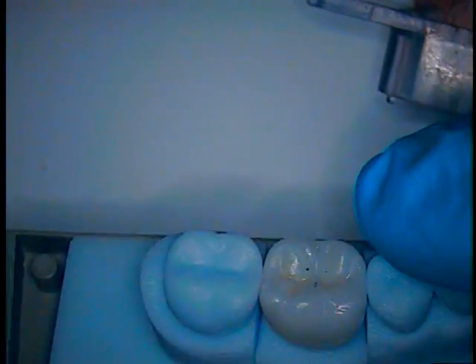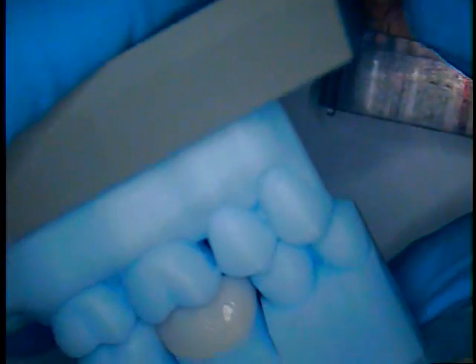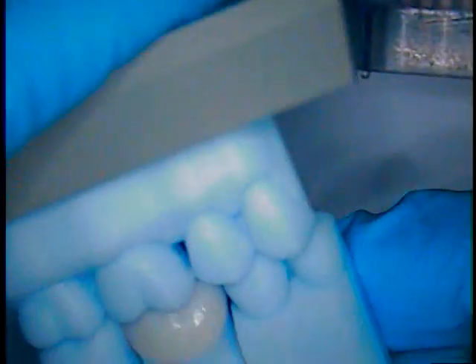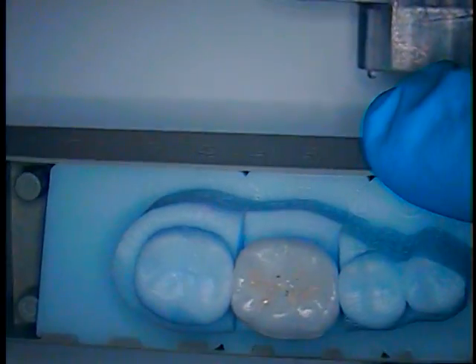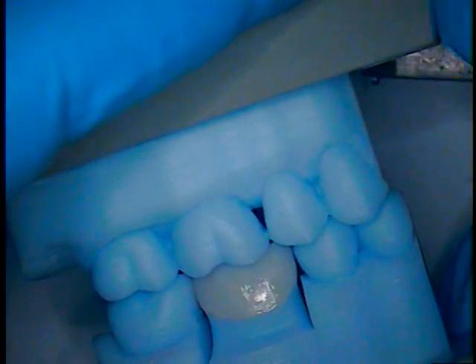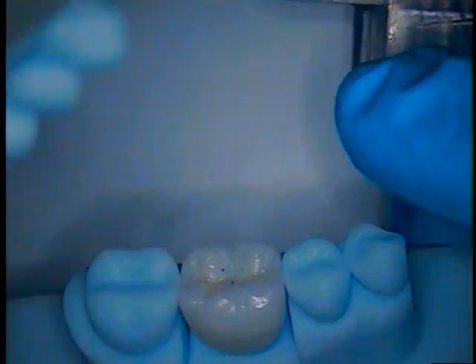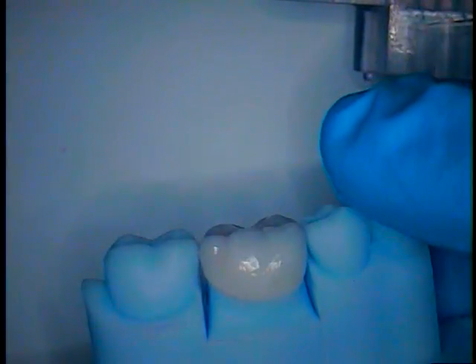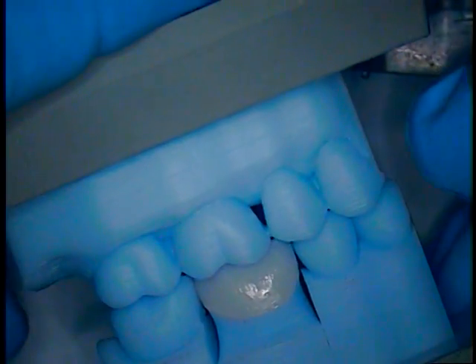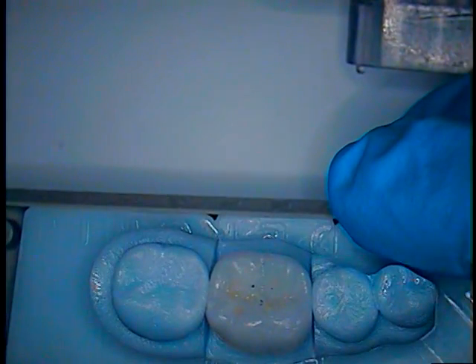Some students got models, some didn't. Some just got the crown back. Model work is just an option. If you need it, it's available. If you don't want it, you don't have to have it. But practice, practice, practice. If you get good at scanning and your margins are easy to read, you may end up with just a scanner in your office. I'm not going to say that 100% of your cases you're going to be scanning, because some of them are going to be more difficult. But for our class, it seems like most of the students did real well with the scanning technology. Soon to find out. I haven't checked their work yet. I'm going to go do that now.